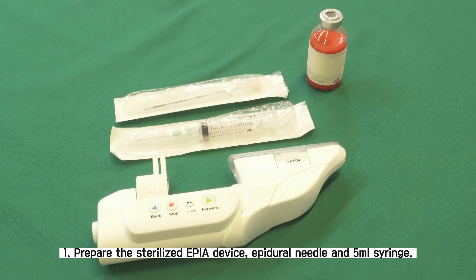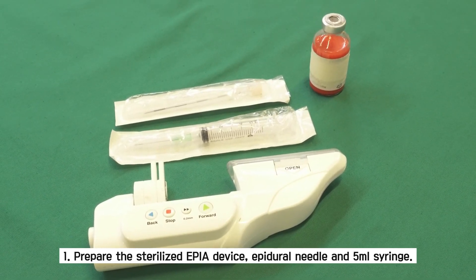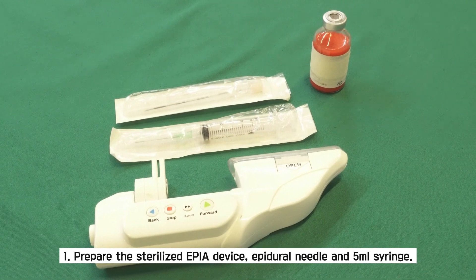Instruction to use. First, prepare the sterilized EPIA device, epidural needle, and 5-milliliter syringe.